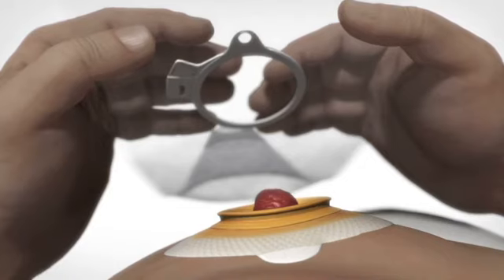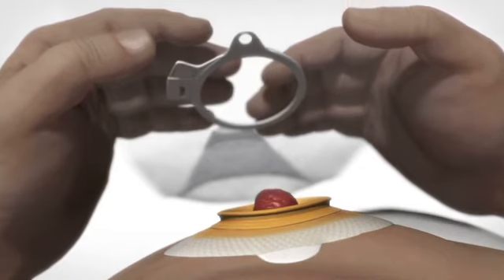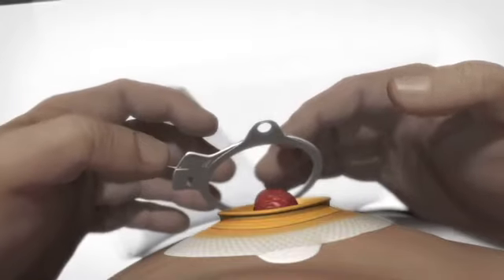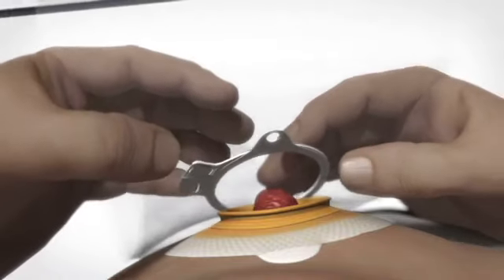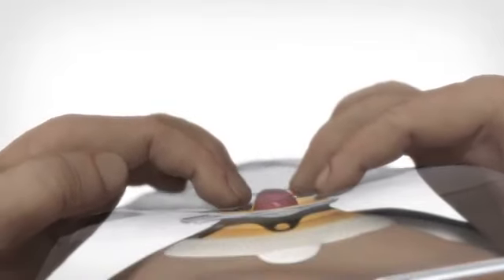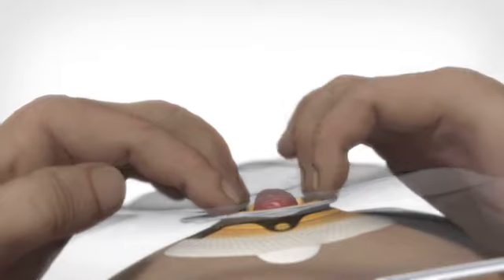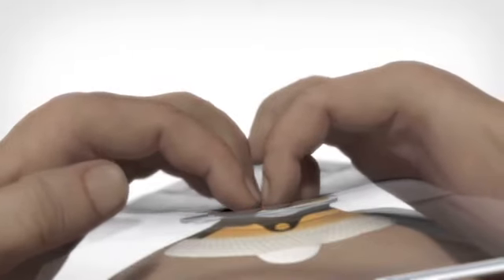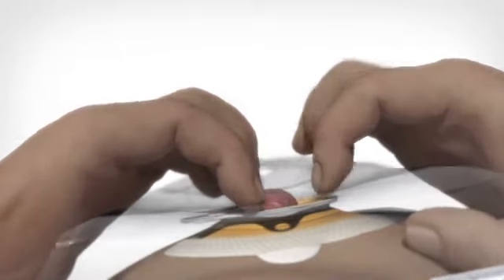The sleeve is connected to the base plate as follows. Ensure the lock ring is open. Press the sleeve and base plate together starting at the bottom. Run your fingers around the coupling on the outside of the sleeve from the bottom to the top. When a slight click is heard, the sleeve is securely positioned on the base plate.